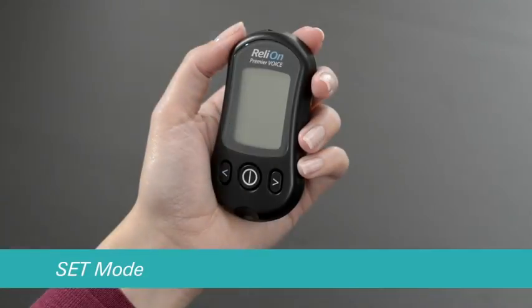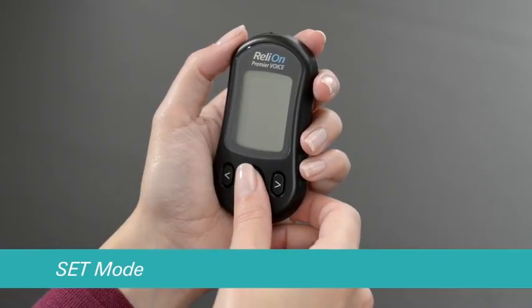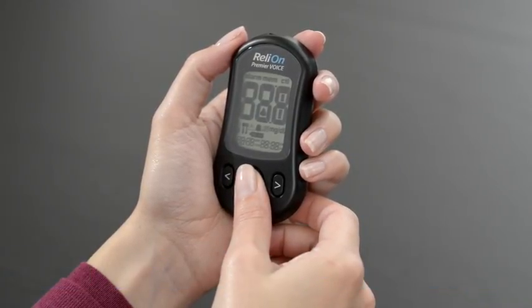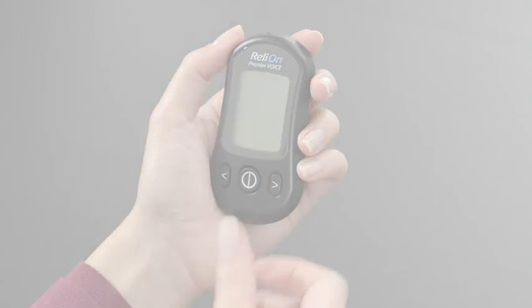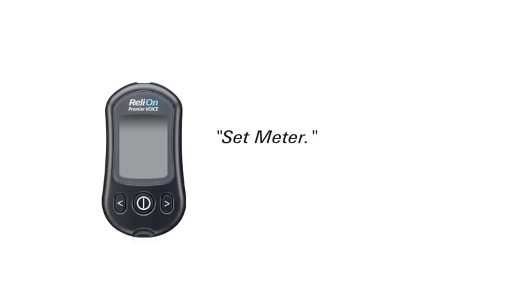To enter the set mode, press and hold the center button for three seconds until 'Set' appears on the screen. The meter will say: 'Set meter.'